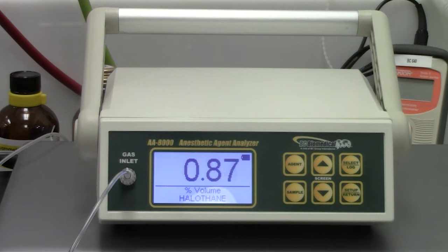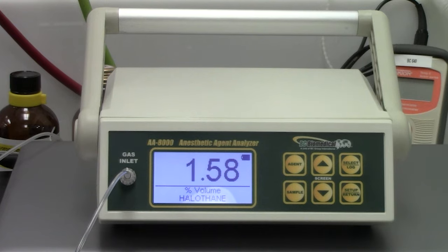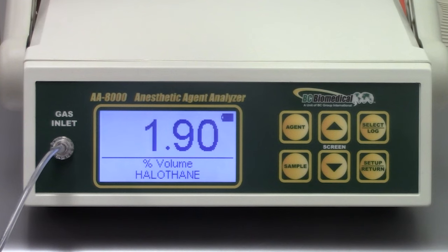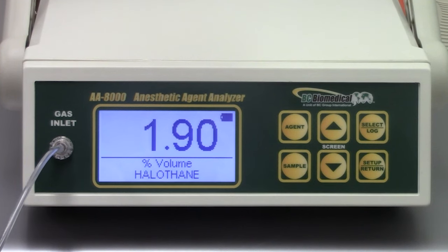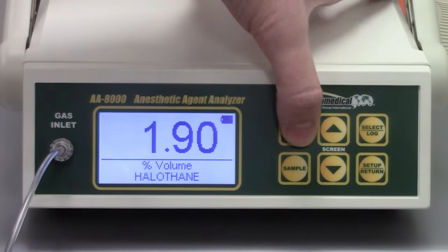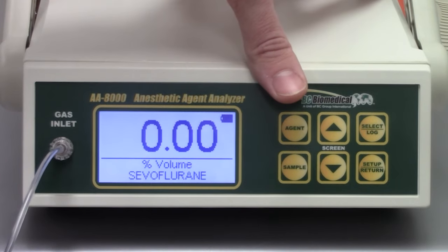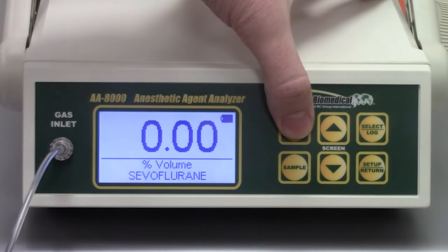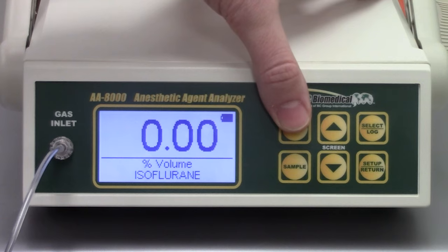Your reading will be plus or minus four percent accuracy. Note that when you have a different agent selected, the Analyzer doesn't show percentage.